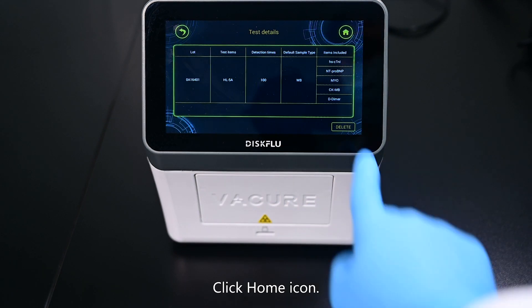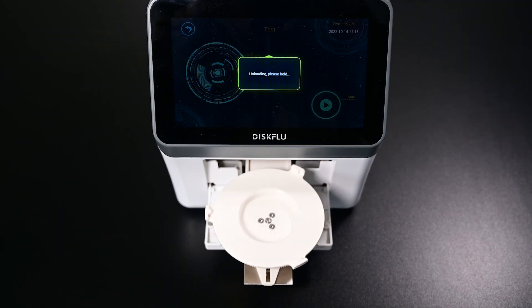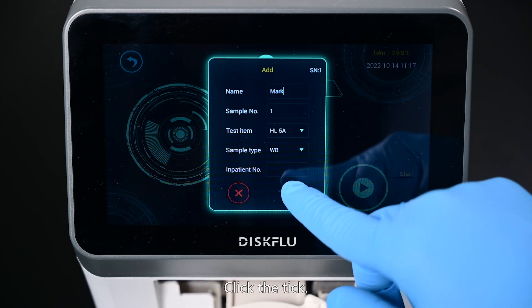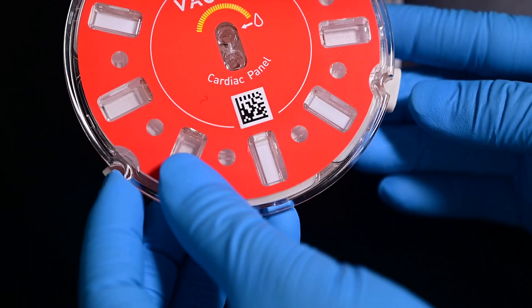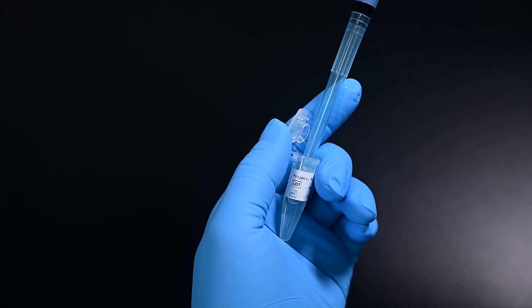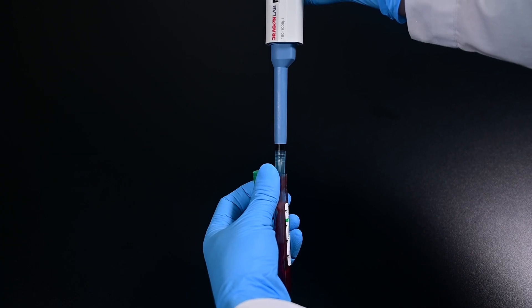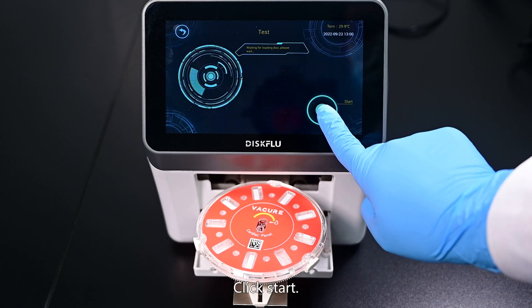Remove it. Click home icon, then click test. Input the sample information. Click the tick. Take out the test disk. Aspirate the diluent into the diluent square hole. Aspirate the sample into the sample well. Click start.